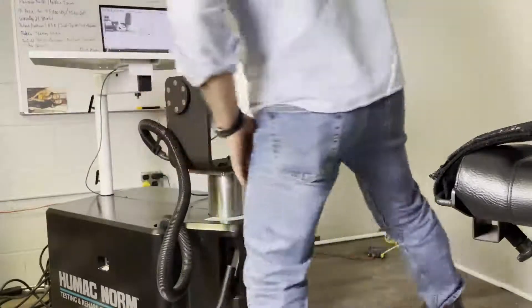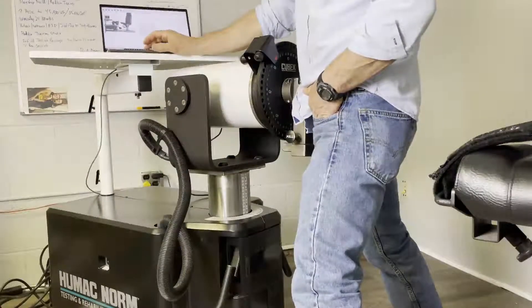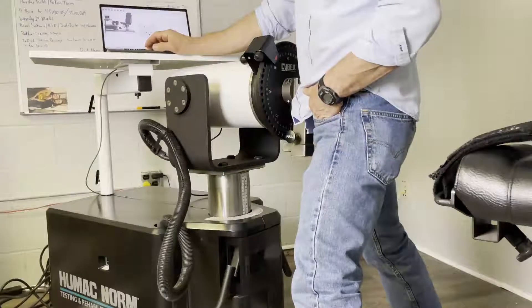From the calibration menu, the bottom choice says weights. If you pick weights, it should have the values. Number one should be the lowest value, and number four should be the highest value.